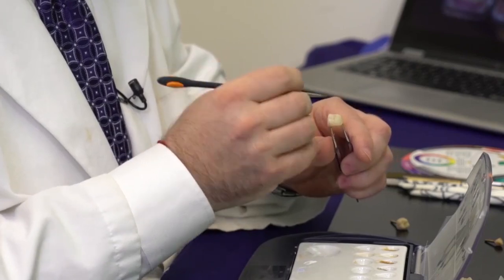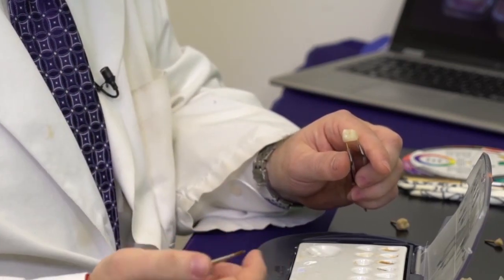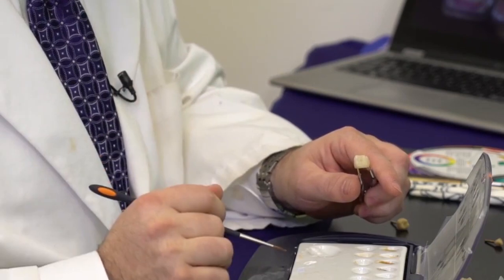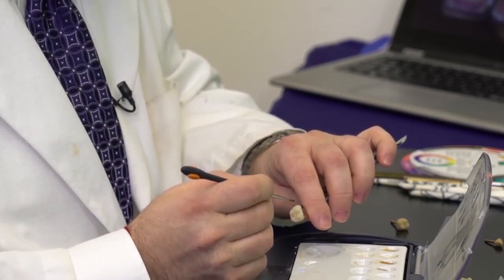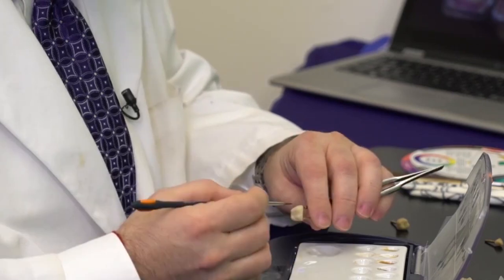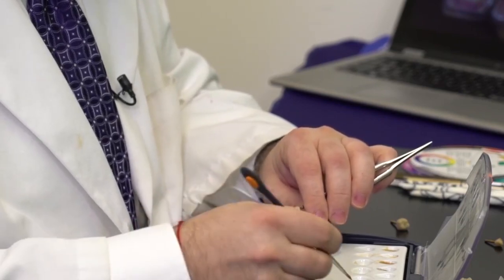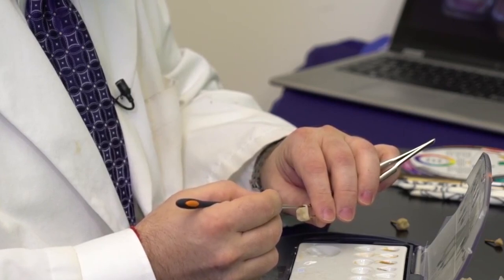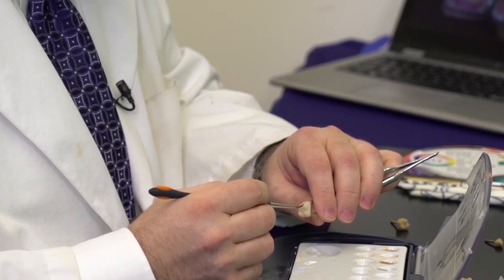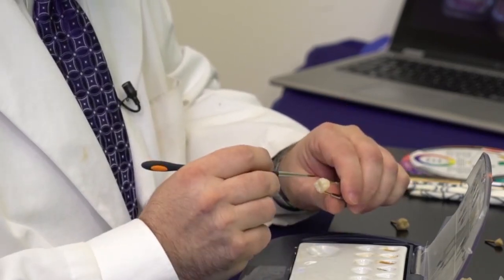Be careful not to put too much in the fossa — if it's not very faint and strategically placed, it looks like you simply stained it, and that's not the outcome we're looking for. You want it to look as though it was built from within, so very faint, blended into the actual zirconia. Now that I've done my chroma, I can add blue again to get that translucency. You have a slightly different dynamic on the posterior because you have multiple areas — I put blue on the mesial as well as the distal, and slightly at each end of the cusps. Don't go in between the two cusps as that will look artificial.